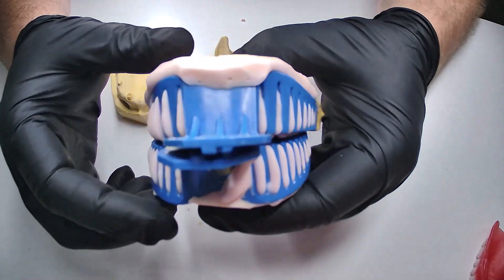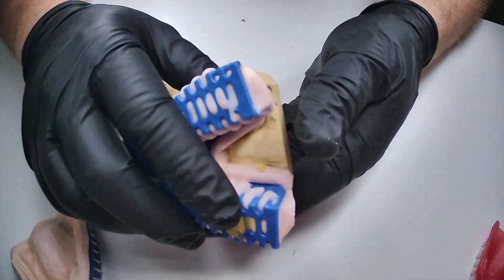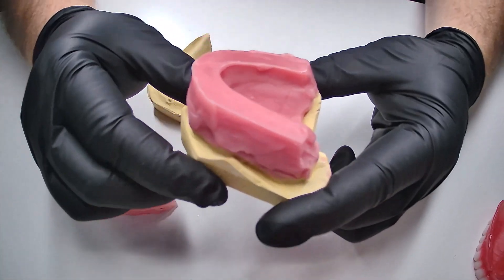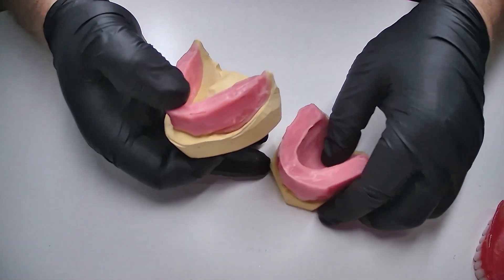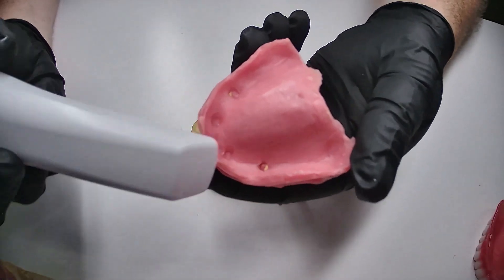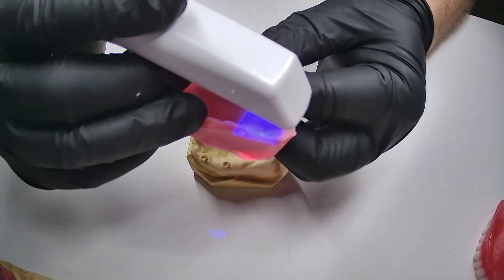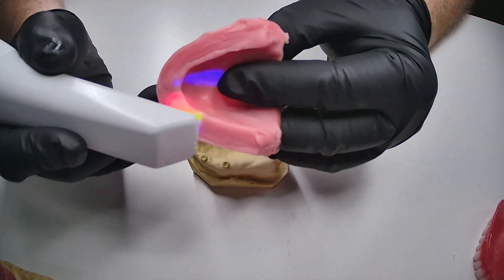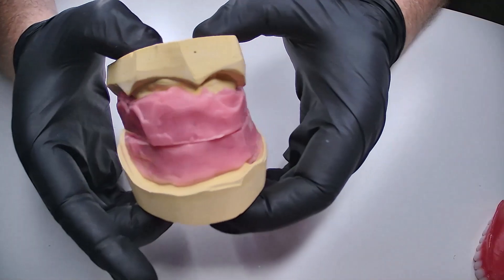In this example, we will be taking traditional impressions and then pouring plaster casts for the creation of the wax rim. We have created the wax rim for both the upper and lower arch, as this patient is completely edentulous. The wax rim ensures the correct vertical bite dimensions are maintained for the appliance. We will be using the same scanning strategy as for the copy and reference denture, starting with an anatomical landmark and working slowly, taking a complete 360-degree scan of the wax rim and ensuring proper alignment of the data. Use an articulator during the bite scan to ensure proper alignment of the jaw.